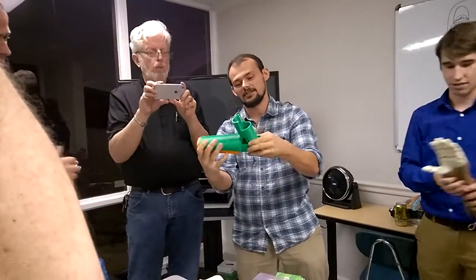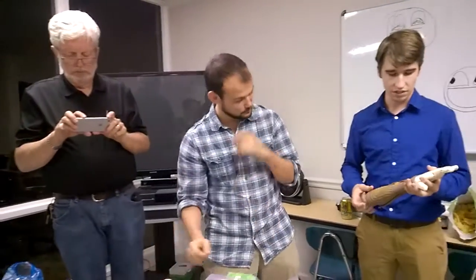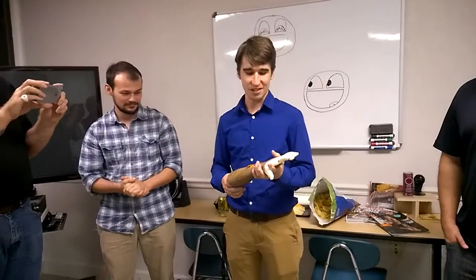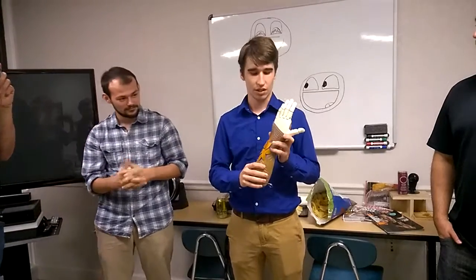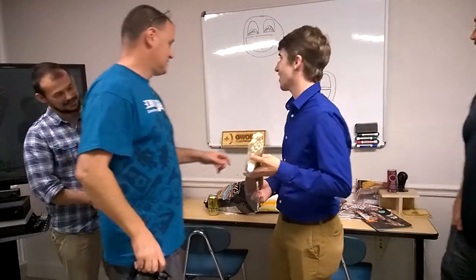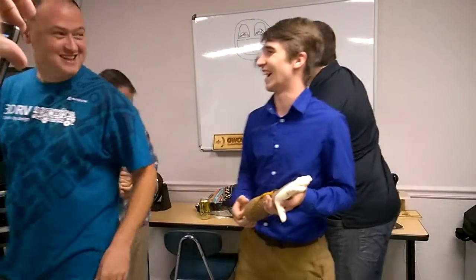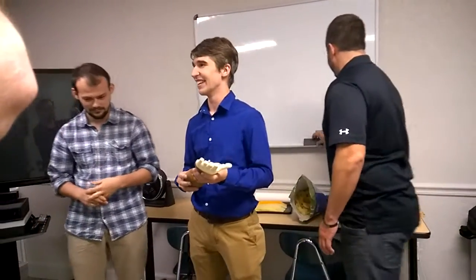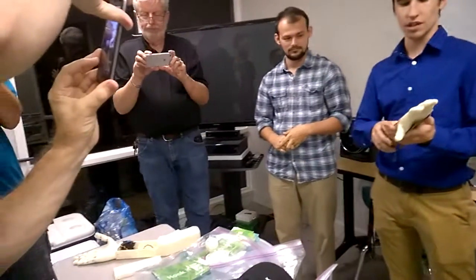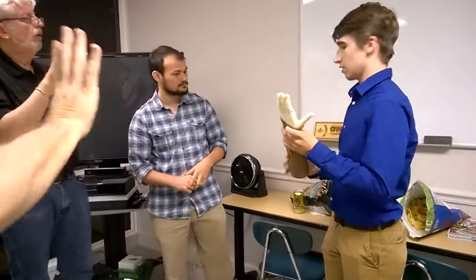There are interesting pivots and joints that we integrated into that. Recently we decided to bring an artist on the team, as you guys were talking about. He actually designed this entire sleeve for it, and then we took it to UCF. We didn't really like how boxy these were, so we asked him to try to make it more sleek and more natural.